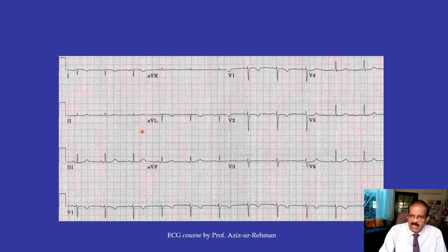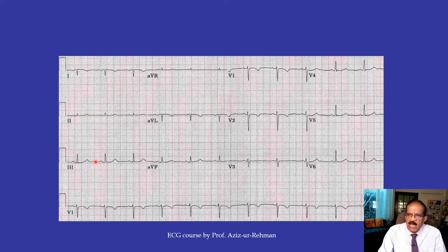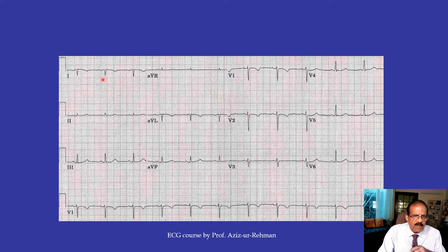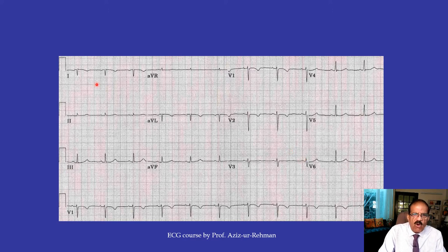Here is another example of technical dextrocardia. From this ECG you might think there is right axis deviation or dextrocardia. But if you look at leads two and three, the complexes are upright — in lead one, two, and three the QRS complex should be upright, yet here in lead one it is downward. However, examining precordial leads V1 through V6, they are perfectly normal. That means it is not actual dextrocardia — it is just reversal of the lead one electrode.